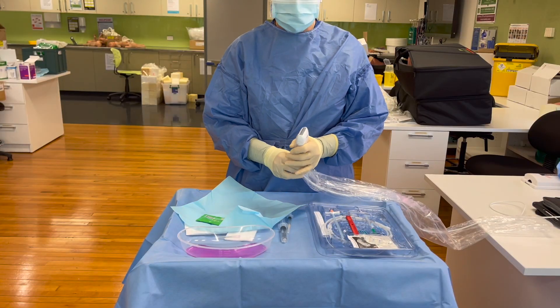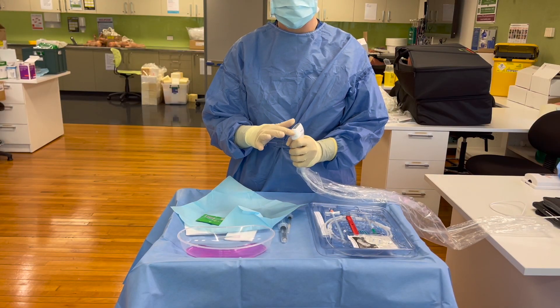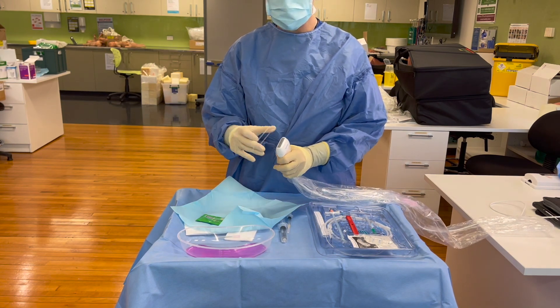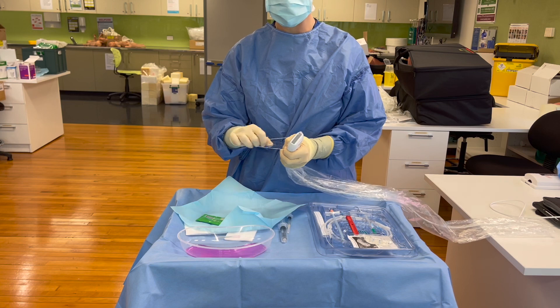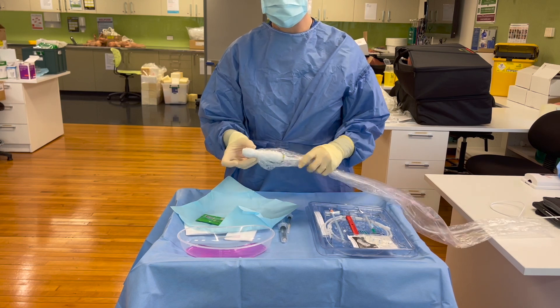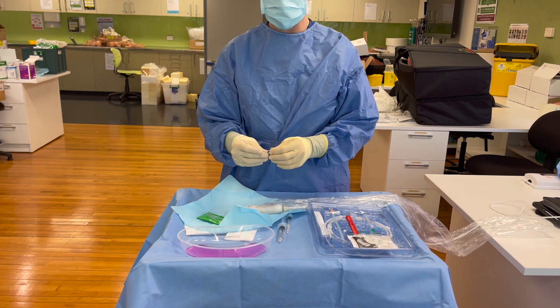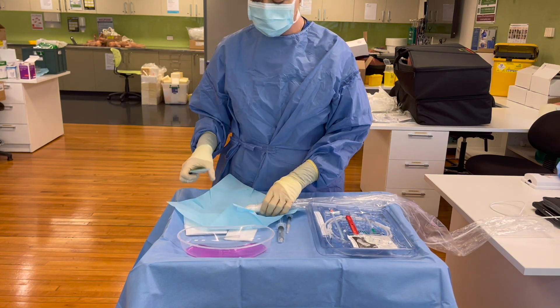When you've covered your entire transducer cable, make sure to smooth out any bubbles in the cover, and then take your rubber band and go around once or twice to keep it nice and secure. There are two rubber bands in case one breaks.